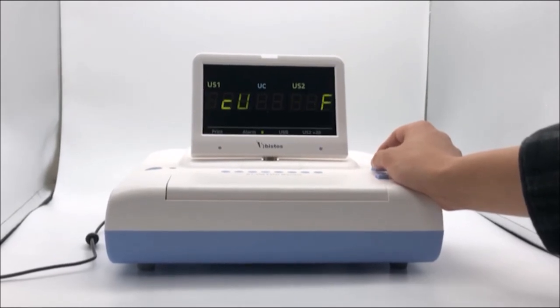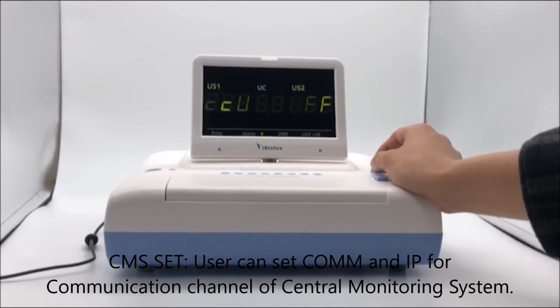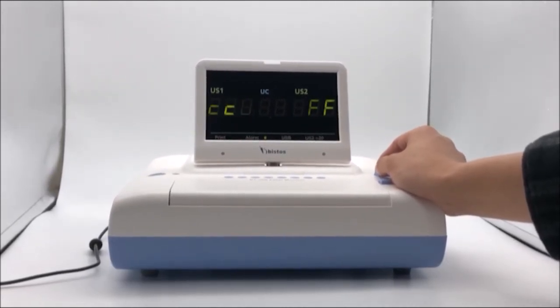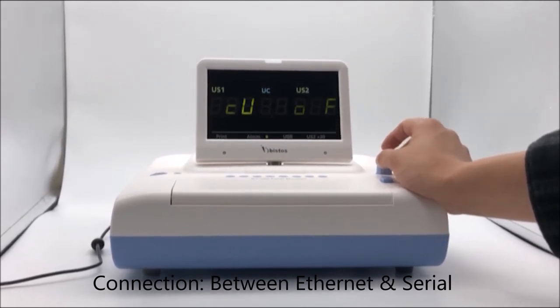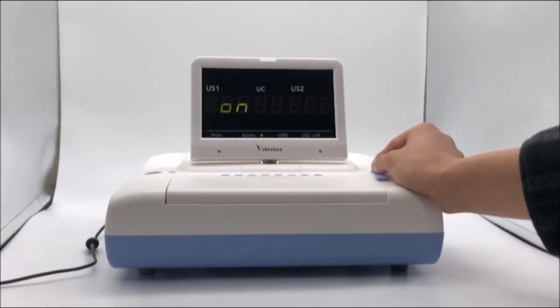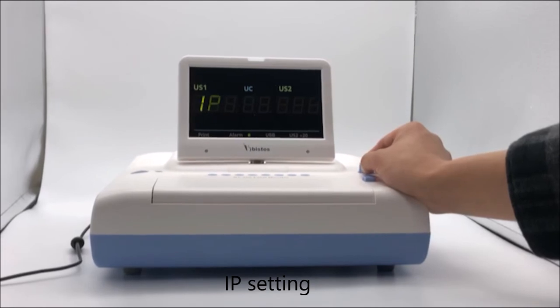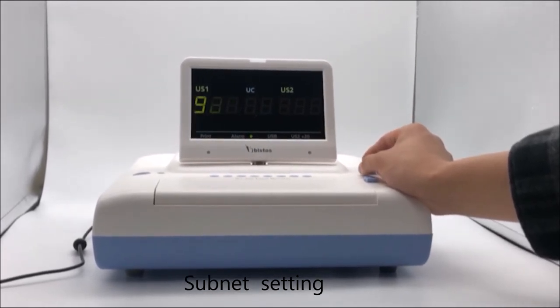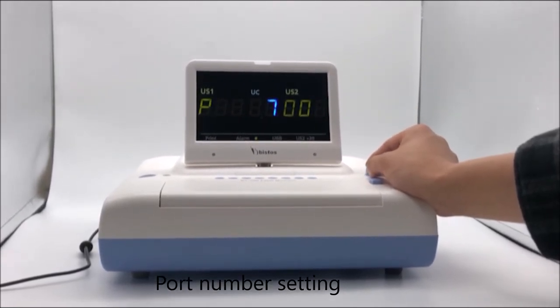CMS Setting: the user can set the communication channel for the central monitoring system, including COMM and IP settings. Options include connection via Ethernet or serial, IP setting, subnet setting, gateway setting, and port number setting.